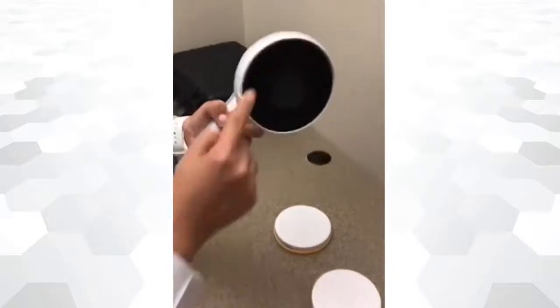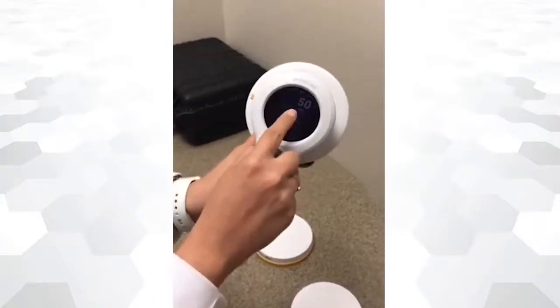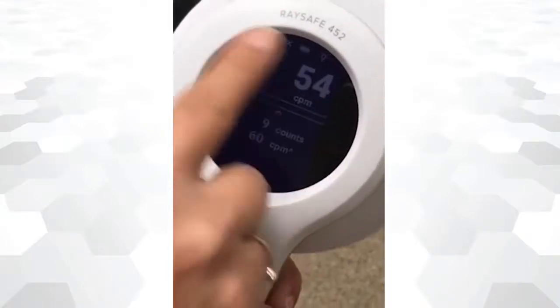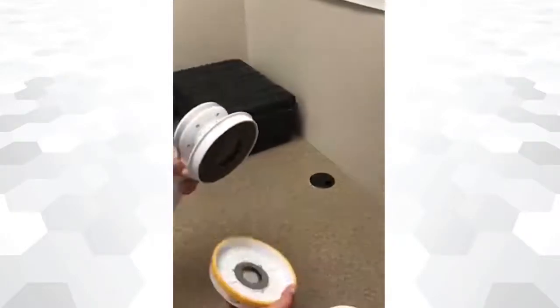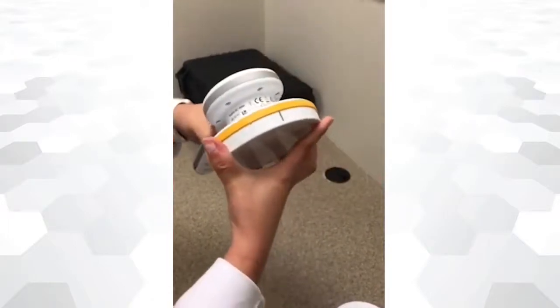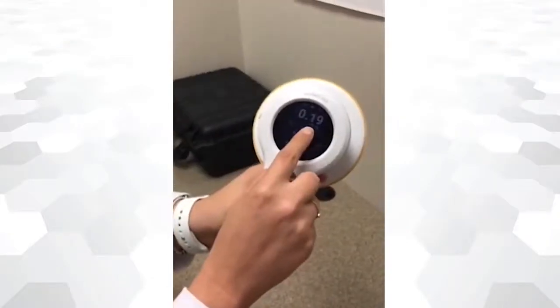To use the detector in Geiger-Müller mode, no lid is required. The units for Geiger-Müller mode are automatically changed by the system — no pre-setup is required. To perform ambient dose measurements, just place the yellow lid into the detector and start collecting your measurements. The device will automatically change its units.